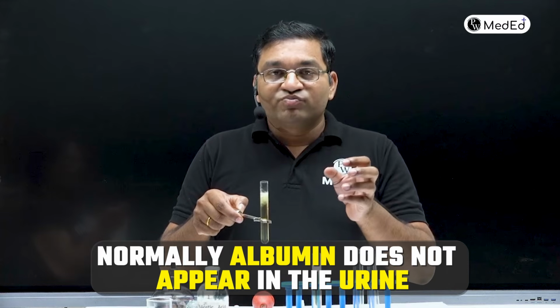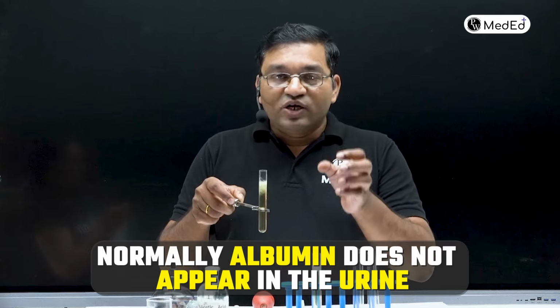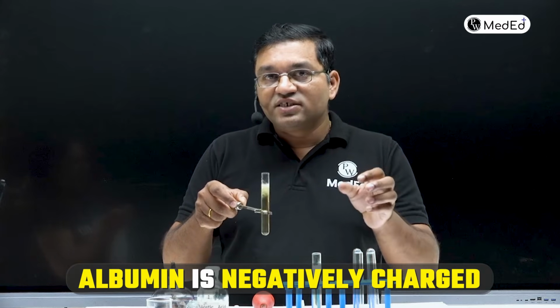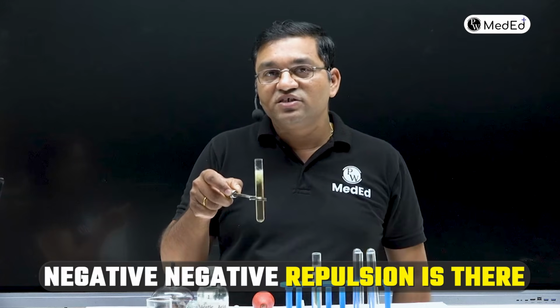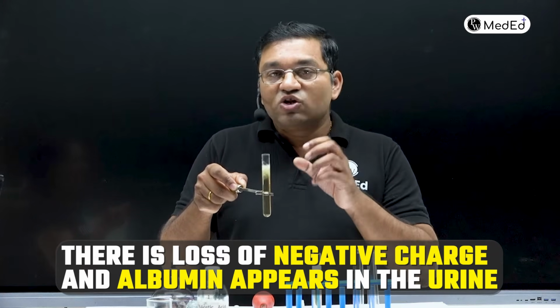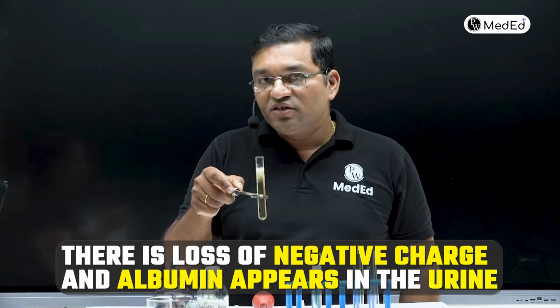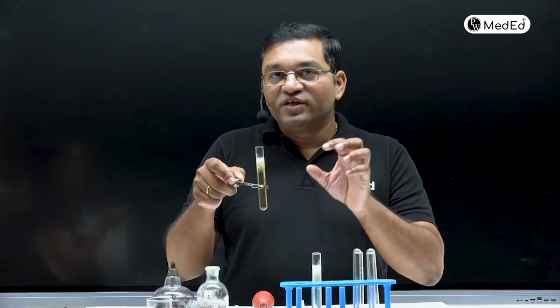Normally albumin does not appear in the urine because of negatively charged heparan sulfate. Albumin is negatively charged and heparan sulfate is also negatively charged. So negative repulsion is there and albumin does not appear in the urine. But whenever there is damage to the glomerulus, there is loss of negative charge and albumin appears in the urine. This is a bedside test for detection of albumin in urine.